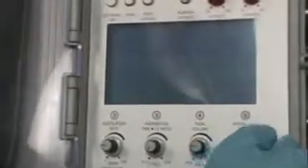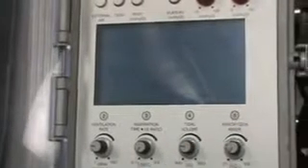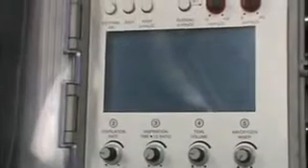So we'll say this patient is on 85% FiO2. And you're going to get an alarm if you don't have enough gas, which we do not. So if I set this thing for higher than it's prepared to deliver, it's going to let us know that there's an oxygen source failure. So it tells you exactly what's going on up here in the alarm, so it allows you to address what to do. So I'm going to bring this back down to 21%. Now you'll see the alarm message center light comes on, and everyone's happy.